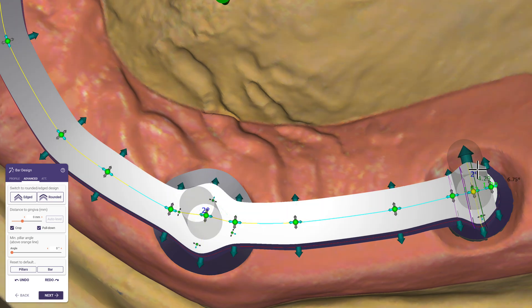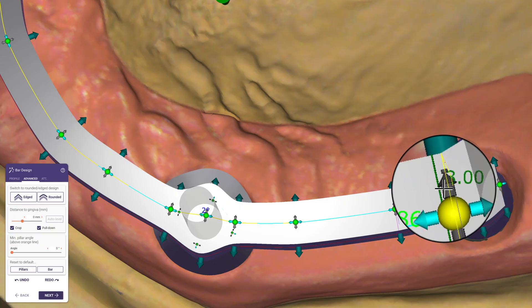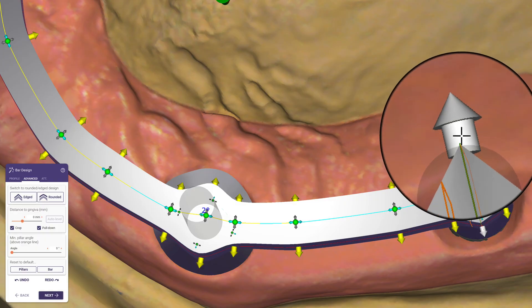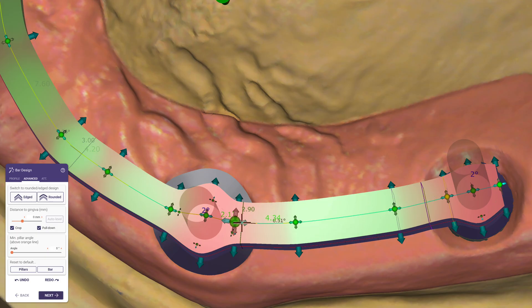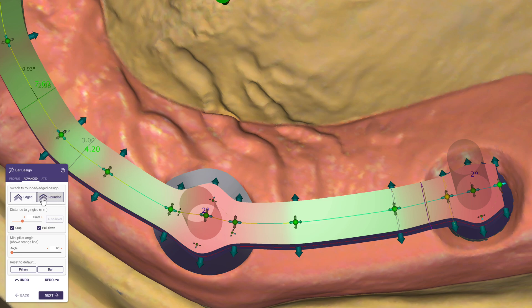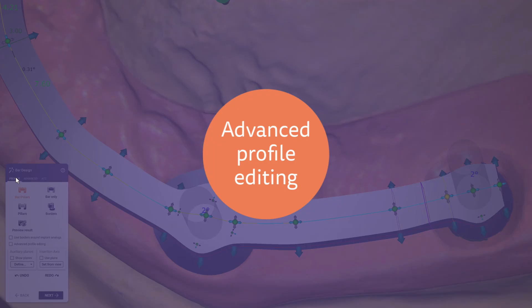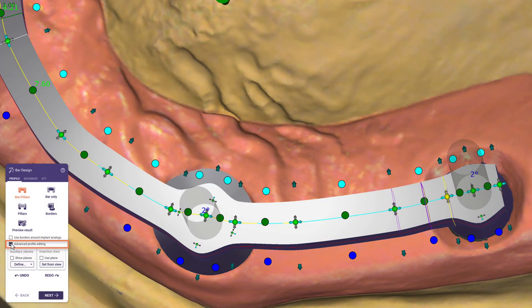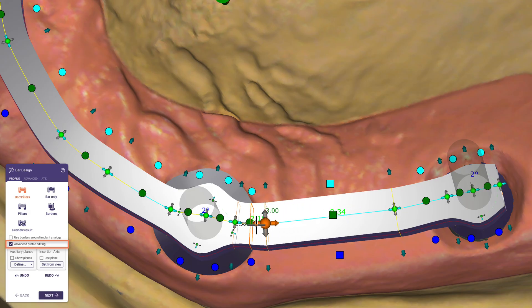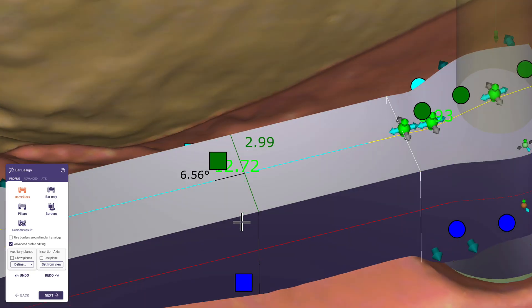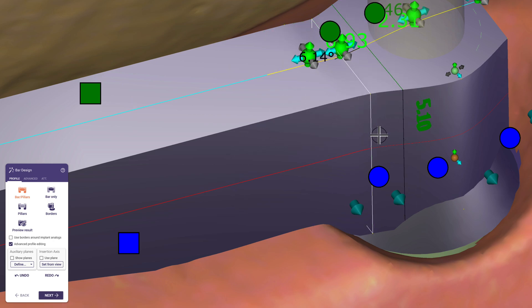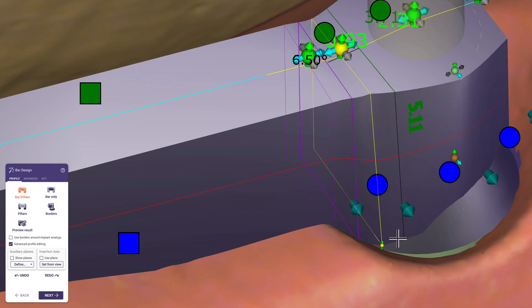The grey arrows offer an interesting option: clicking on them toggles the area from rounded to edged, as indicated by the shape of the arrow. Another click restores the smooth shape. The bar design looks nice and clean. However, allowing the software to smooth edges results in a slight softening of parameters. In cases where it is critical to keep exact values in certain areas, the advanced profile editing option is needed. When activated, it lets you individualize the shape of each side of a segment — maintaining perfect dimensions in the defined area while enclosing nearby areas like columns. Advanced profile editing also provides more control points at the edges, allowing you to adjust the angle of a selected control point for greater design control.